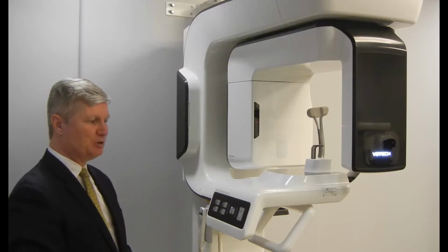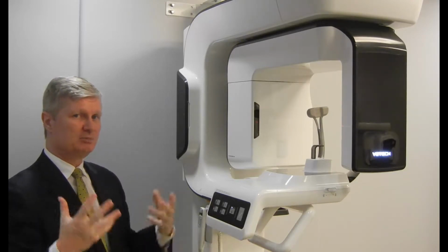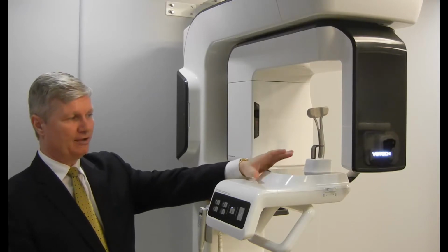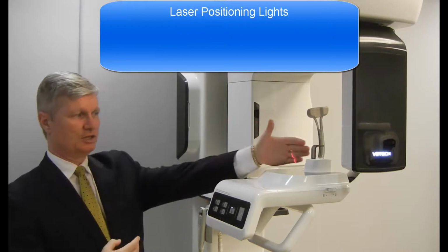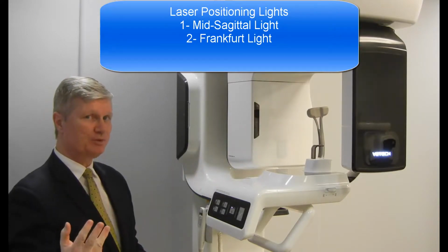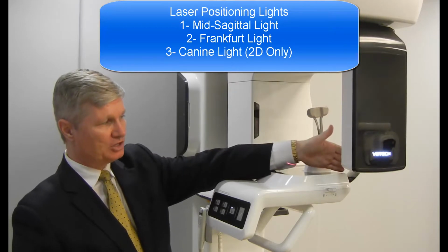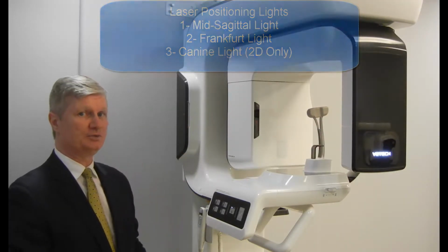Continuing with the major components of the device, we have a handlebar for the patient to hold on to during image capture to maintain stability. Other parts here with the device, we have our lights for positioning. So for 2D, there are 3 lights. There's a light here, which is our mid-sagittal light. A light over here, which is going to project for our 2D and for 3D, which is our Frankfurt light. And for 2D only, there's also a light over here, which is our canine light. We're going to project it in the center of the upper left canine tooth.